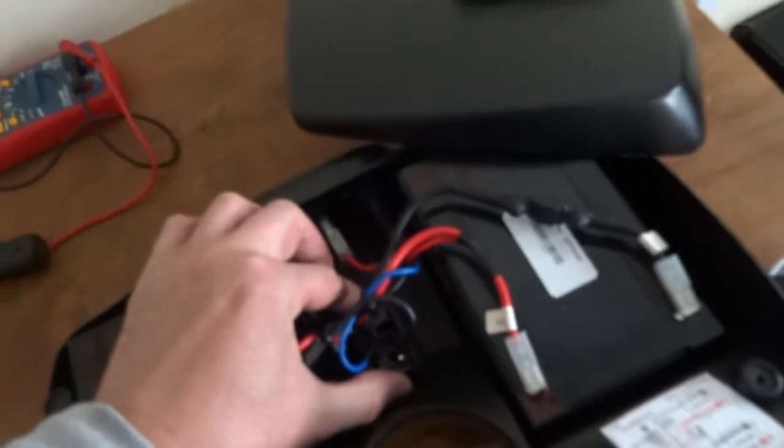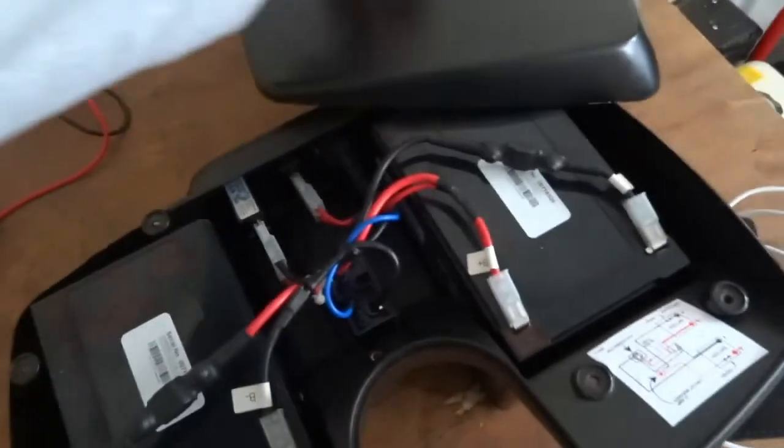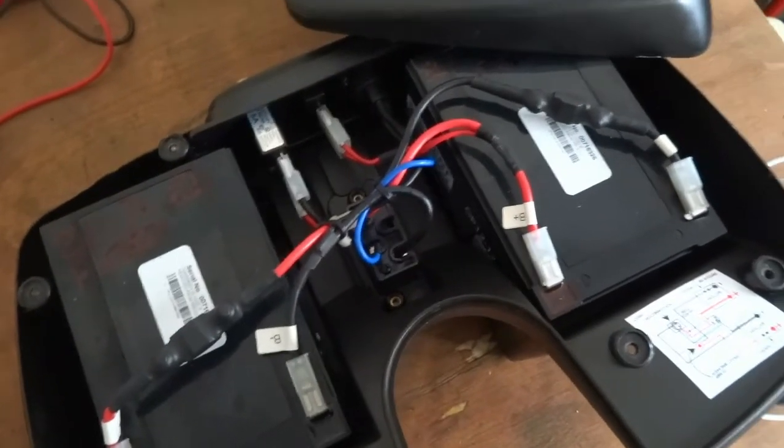That's your connector that connects onto the bottom of your scooter so you can obviously pull this pack out and bring it inside and charge it if you need to. Which is a good idea, never seen that before.